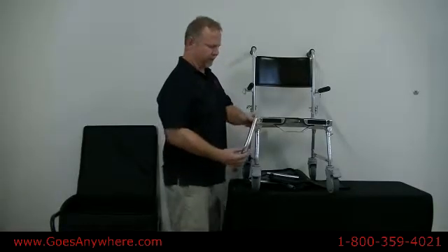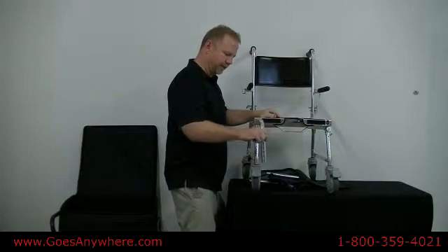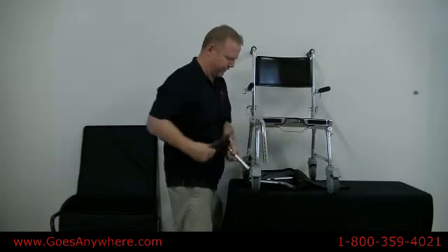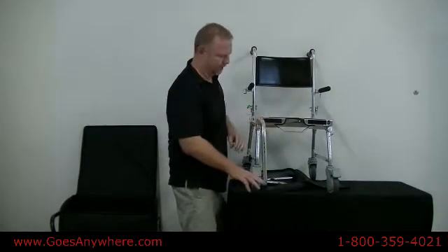First, color coordinate. When we install, we install it horizontally, facing in. Then rotate it to the down position, which is also locked. Then install the corresponding foot paddle by depressing the spring pin, putting it in and adjusting it to the desired height. Then repeat on the opposite side.